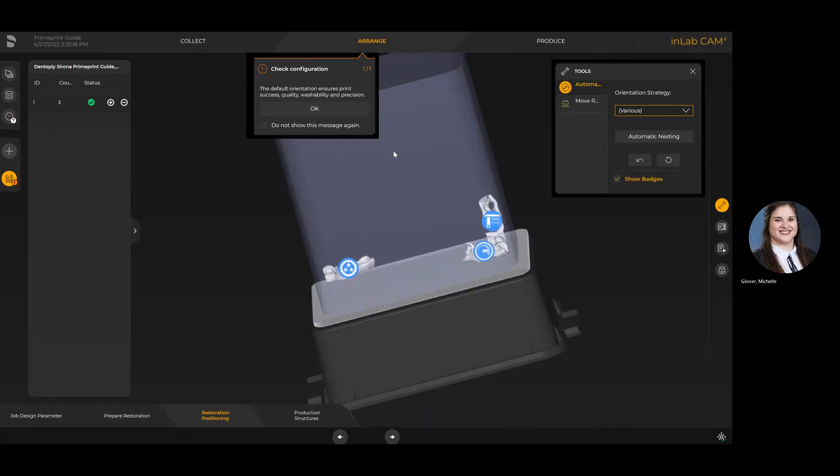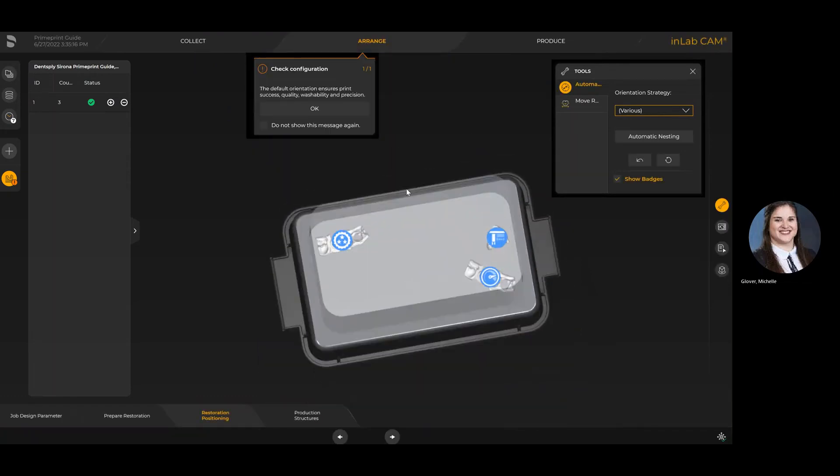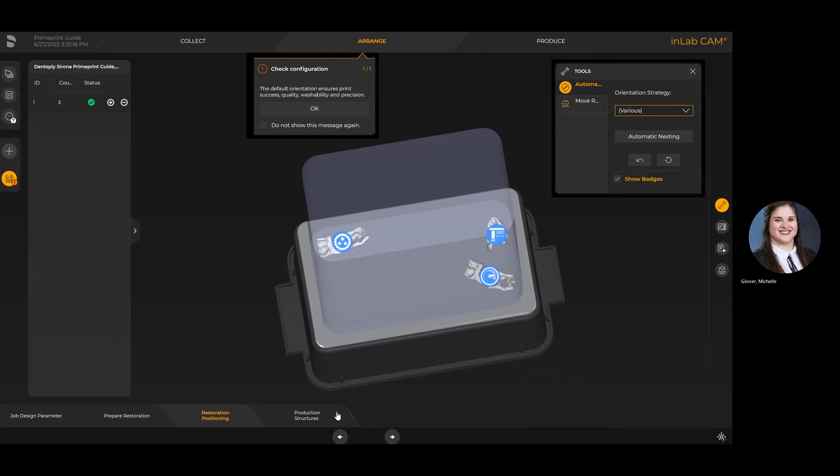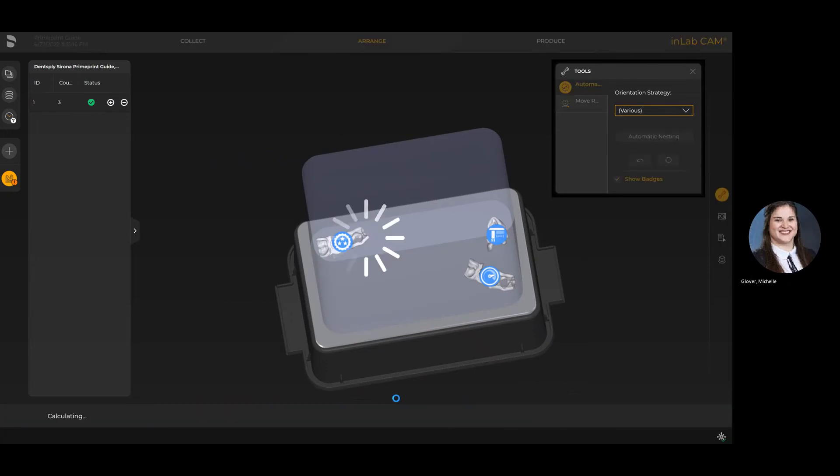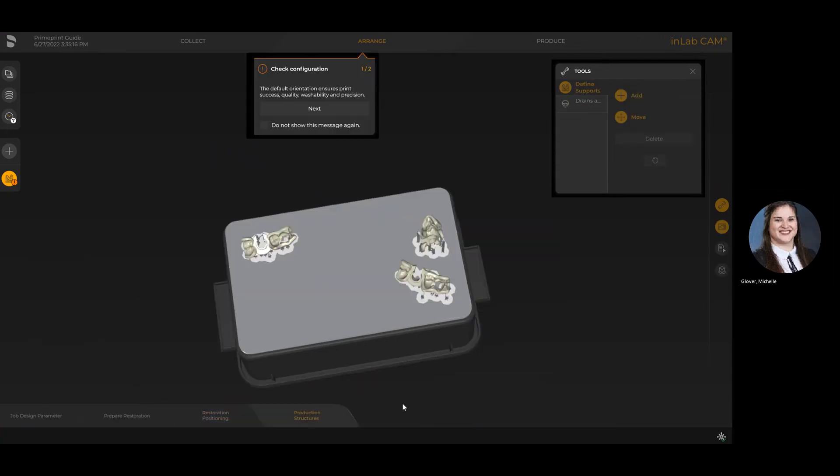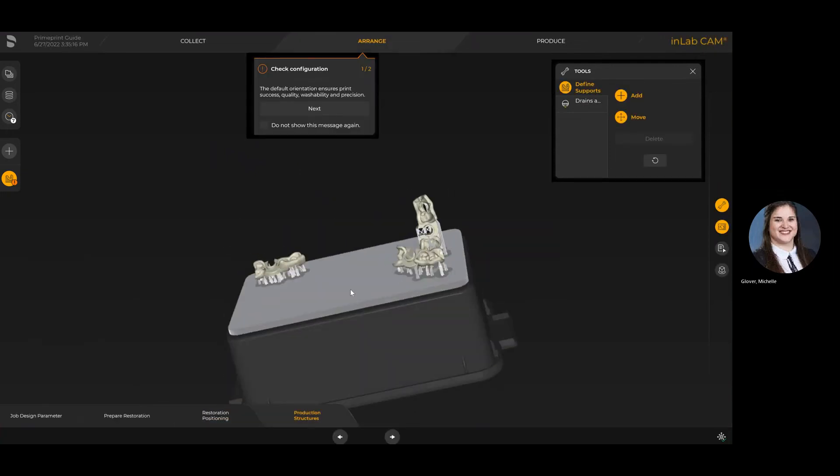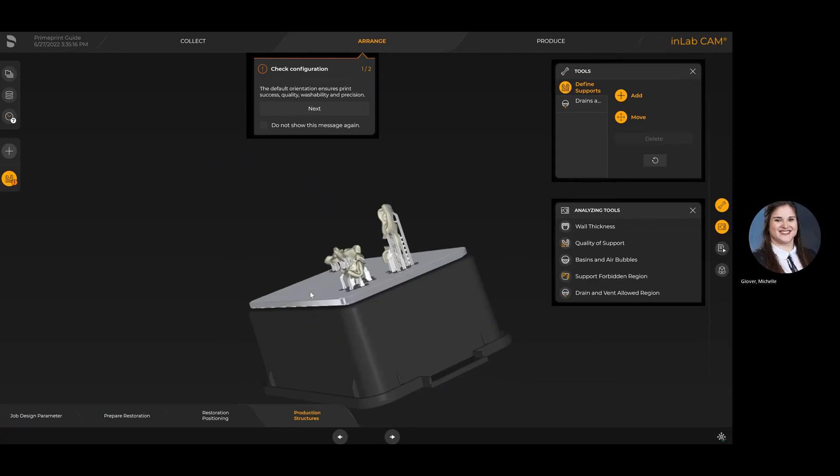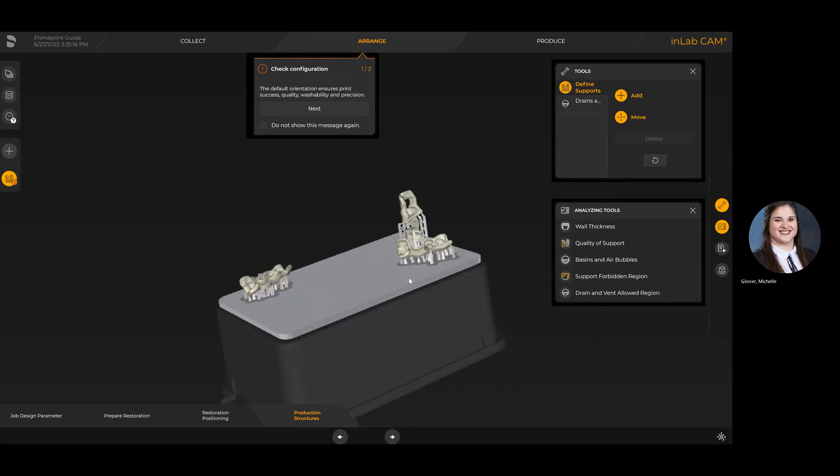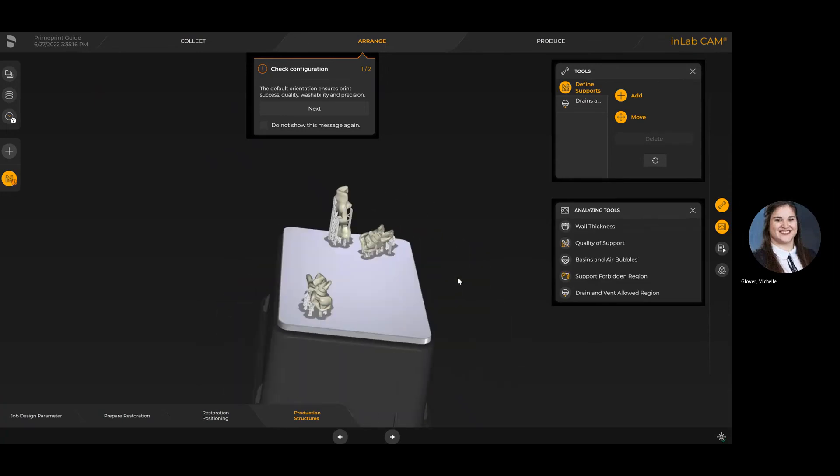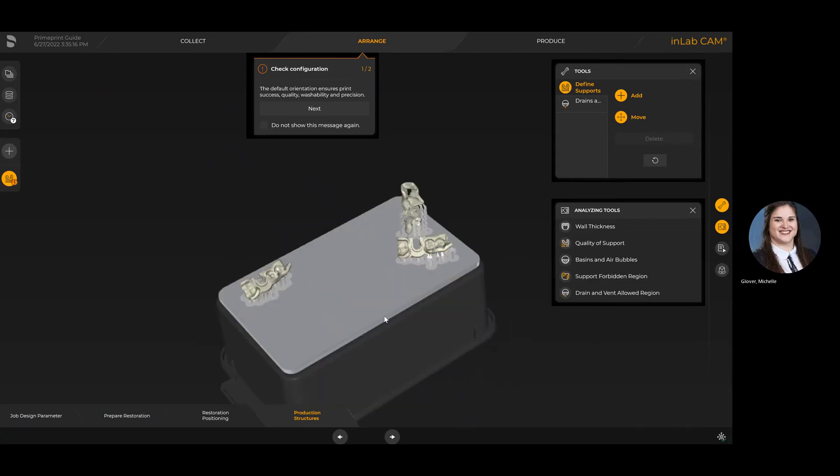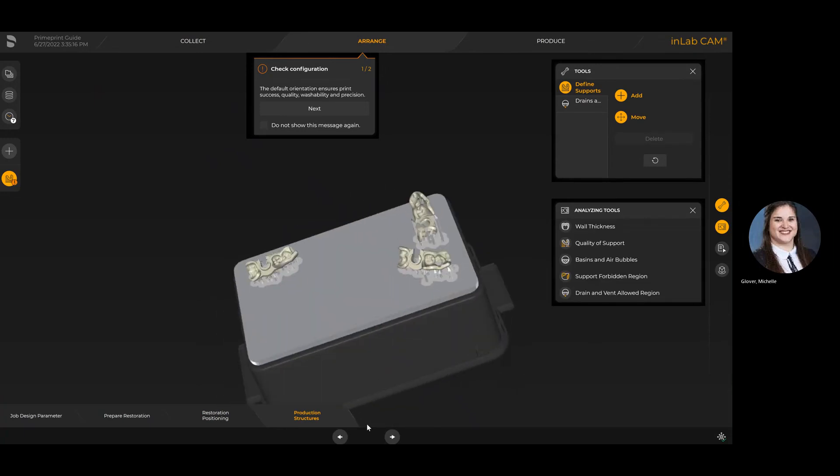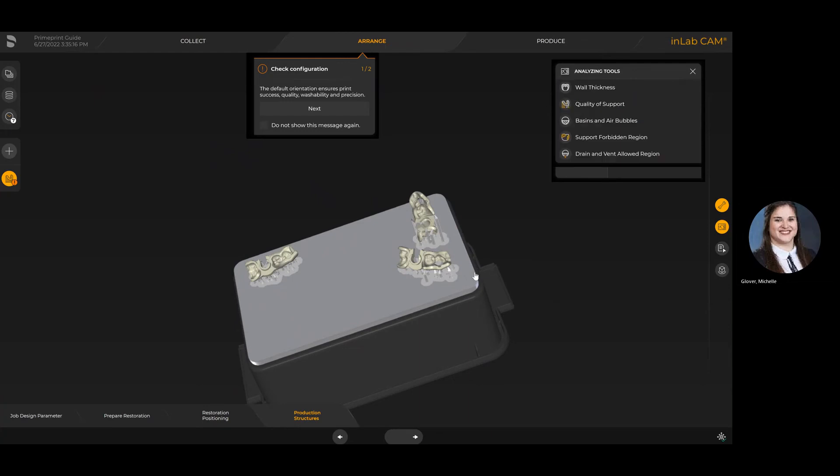The last option is optimizing the footprint. What that's going to do is allow me to fit more on a single printing job; however, it's adding more layers, so it's actually going to take a little bit longer because you'll see that's much taller when vertically placed as opposed to when positioned closer to the build tray.